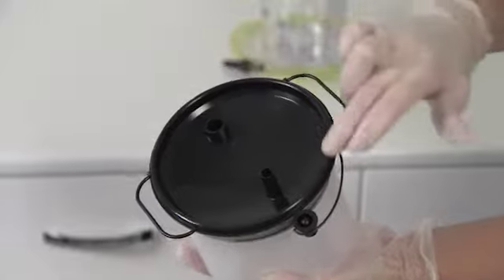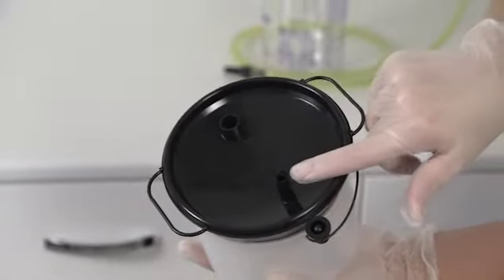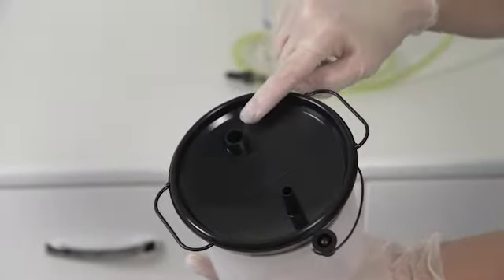Note first the patient port and then the vacuum port. These are unique and cannot be misconnected.